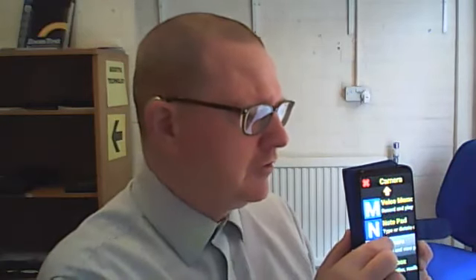Cancel and go back. Main menu, page 3 of 5. Notepad. Camera. Take and view photos. So photographs, very easy to take on this device. Camera menu, page 1 of 2. So in here, I've got an option to take a picture or view photos I've looked at before. Let's have a look at the top option.